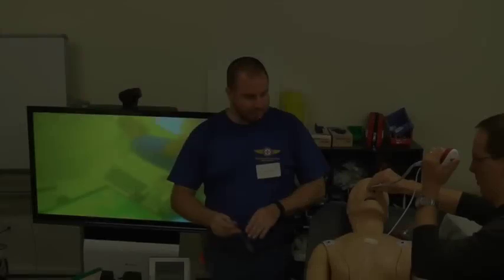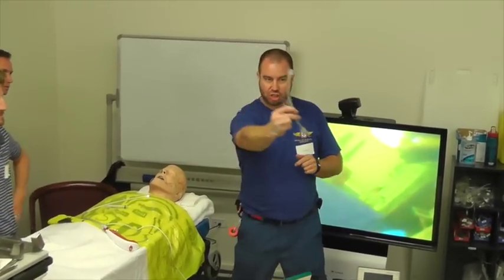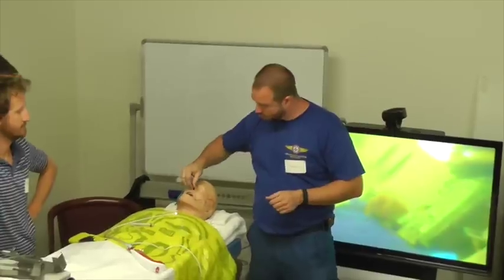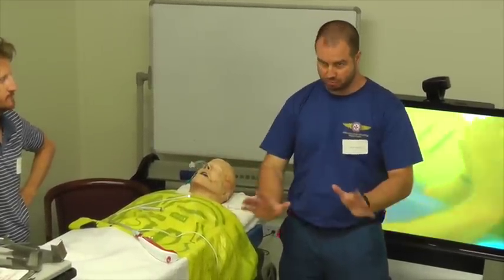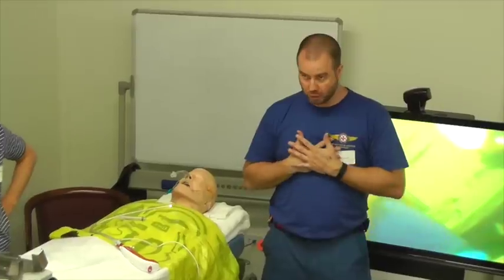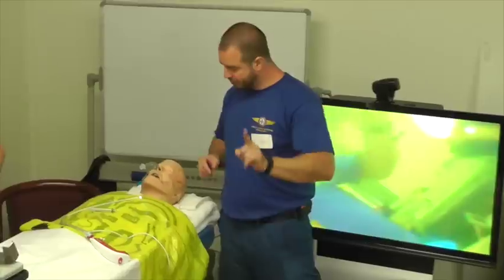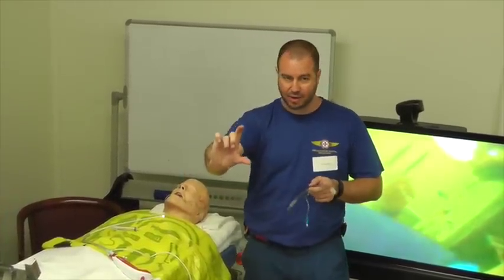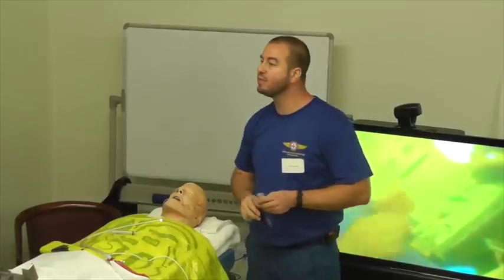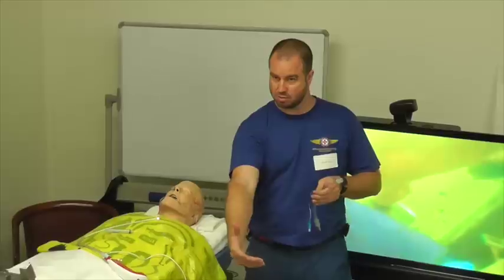Some people routinely, instead of using a nasopharyngeal, will put their tube into the nose as their portal for the introduction of their scope. Now, I don't have a problem with this. I don't do it for a couple of reasons. So if you do it, just be aware of the disadvantages of this approach. The first disadvantage is the split nasopharyngeal always tends to sit in the hypopharynx in a regular position, and you often see the level of the cords nicely. It always just presents you with the view of the cords.